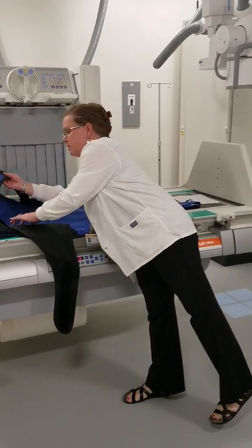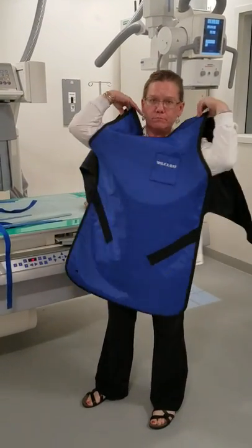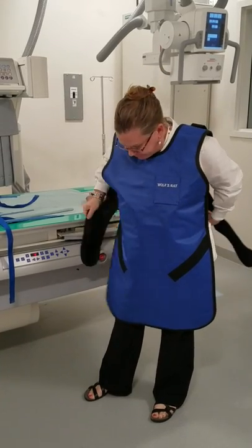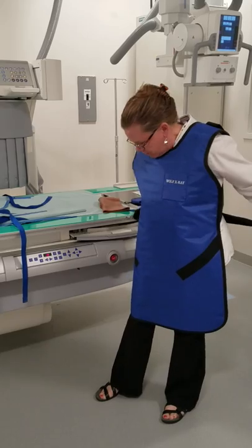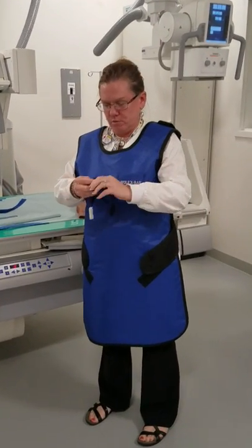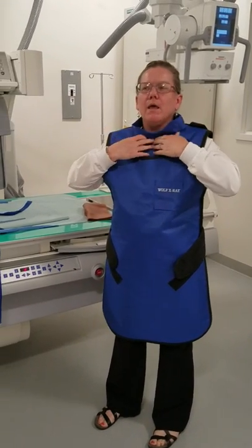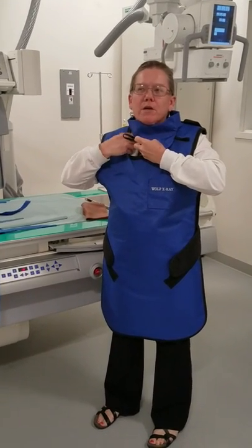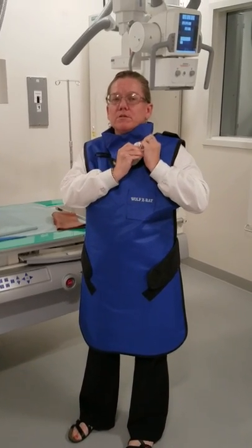When we're doing fluoroscopy-type images, we use what we call lead shields to protect us. Both the radiologist and the technologist will have a torso shield that wraps around, and we'll also have a thyroid shield on. When working in radiography, you always have a dosimeter on — in fluoroscopy, we wear the dosimeter outside our thyroid shield so it detects how much radiation we're receiving.